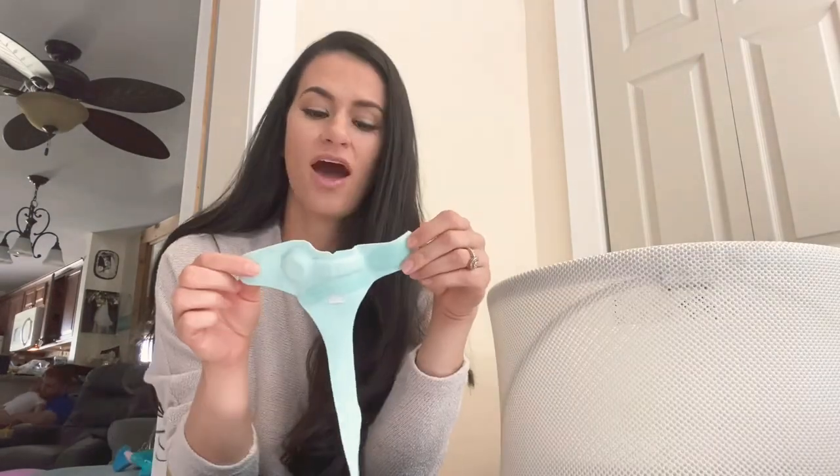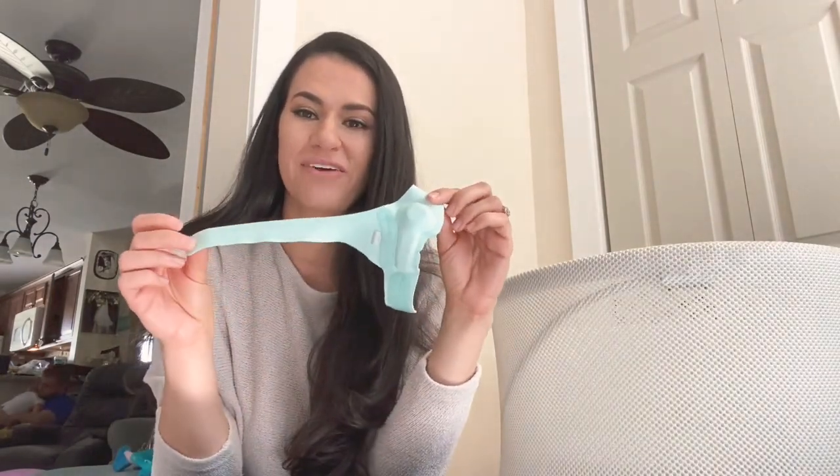So that's my review of the Owlette Smart Sock. I used it on my daughter who is now three years old and I'm now using it on my son who's just shy of six months. It's just that added level of peace of mind — I'm not constantly reaching into the bassinet to check if they're breathing. Wouldn't live without it. Wouldn't sleep without it.